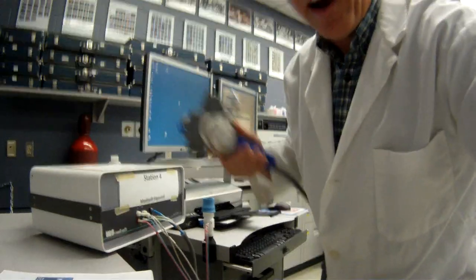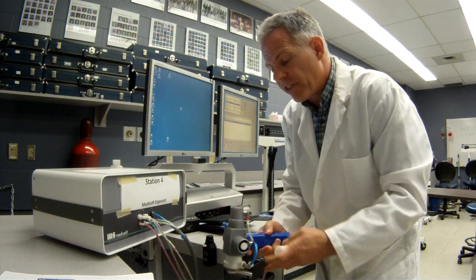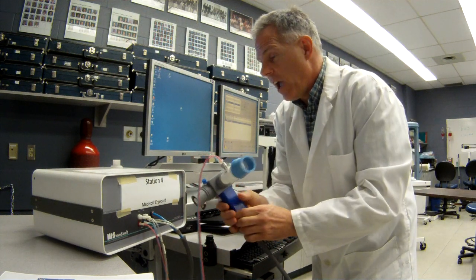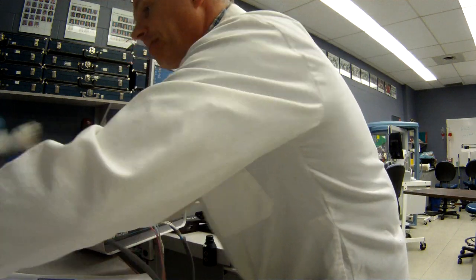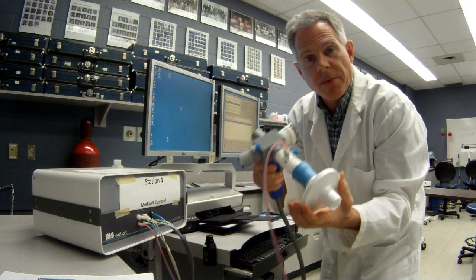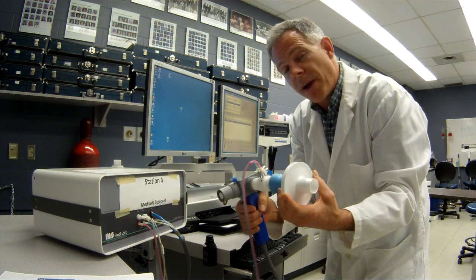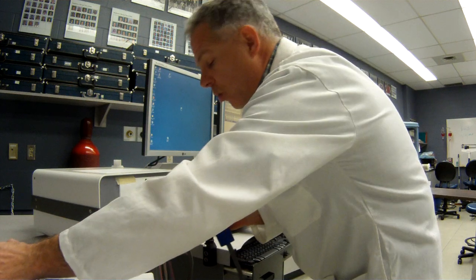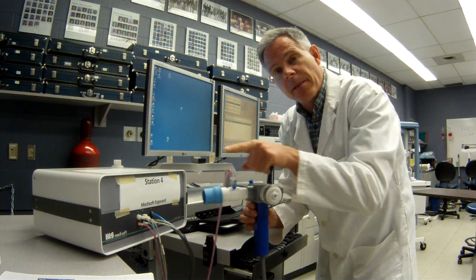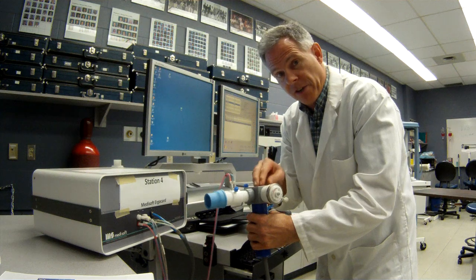Another part of this device is the gas controlling unit, and that's this unit right here. So when you're doing tests like the nitrogen washout and the DLCO, you're going to put this together like this. And we're going to have our patient's filter, and that will be attached just like this. So this would be the unit that we would use for specialty testing like a nitrogen washout or a DLCO or a single breath nitrogen washout. So any of the specialty tests where the gas control unit, which is this part right here, and this little regulator, are needed to control the gases that the patient breathes in and out. There's a little slider valve inside here that controls which gases the patient's going to be breathing.